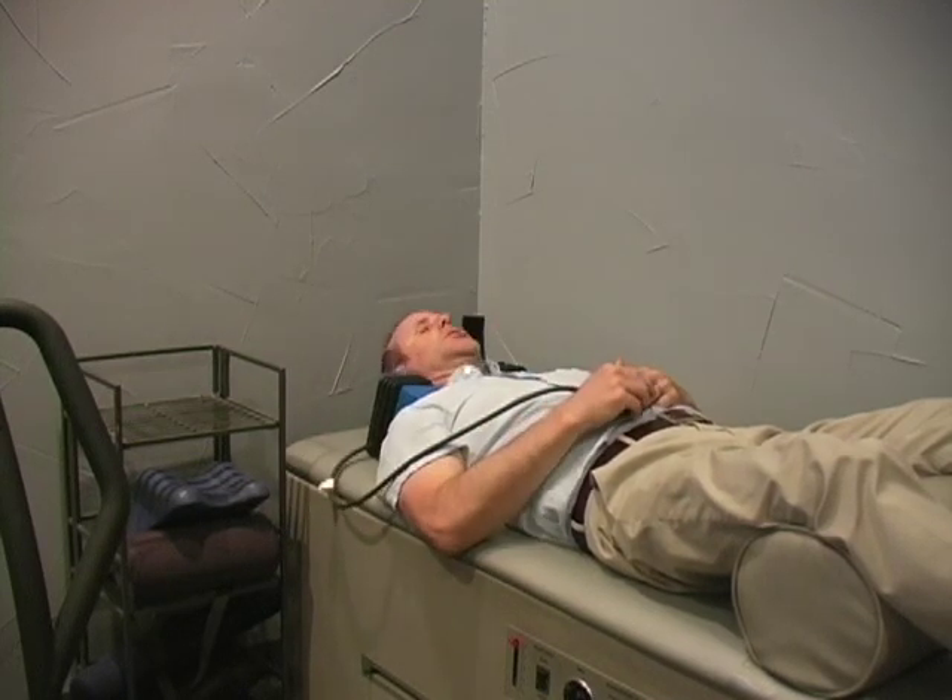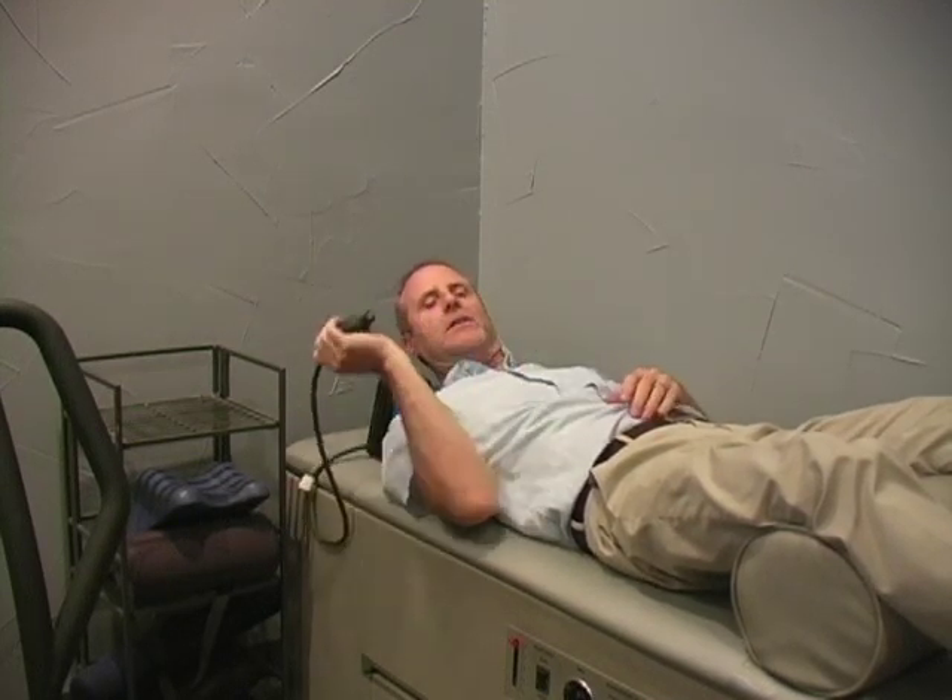Be sure and check with your doctor before doing this. It's a very effective way to train the neck in a very controlled, comfortable, and cushioned way.